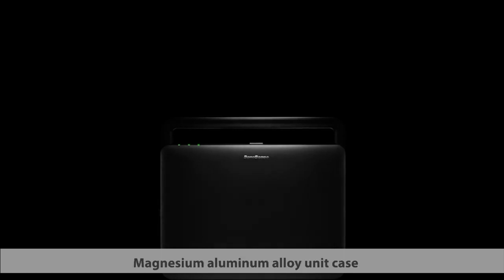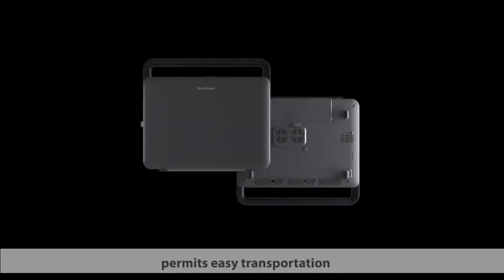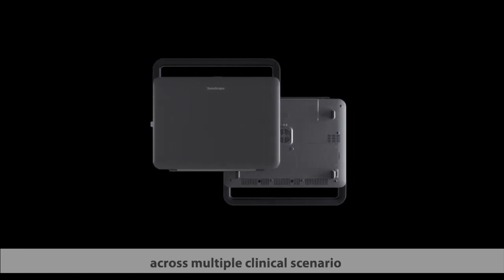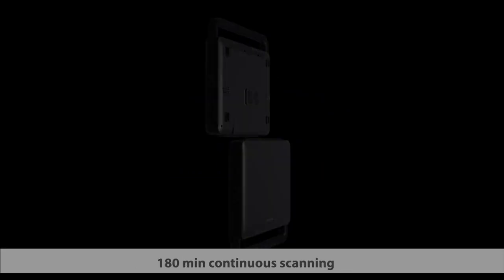Magnesium aluminum alloy unit case makes it durable enough to withstand today's harsh environments in any situation. 4.5 kg ultra-light design permits easy transportation for indoor and outdoor use across multiple clinical scenarios. Flexible battery solution supports up to 180 minutes continuous scanning.